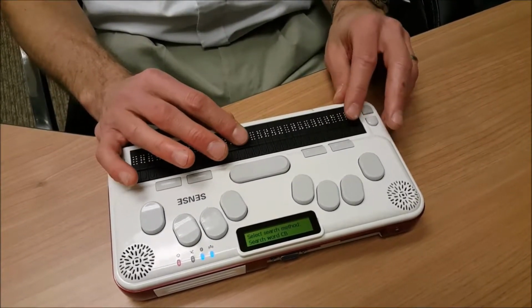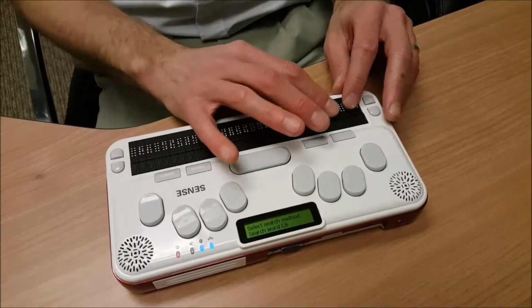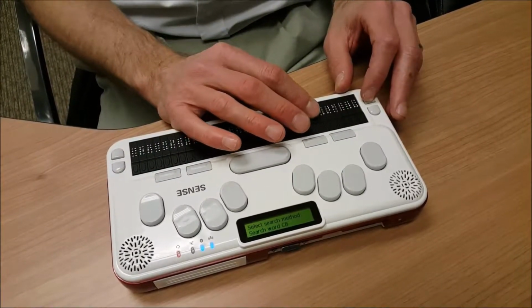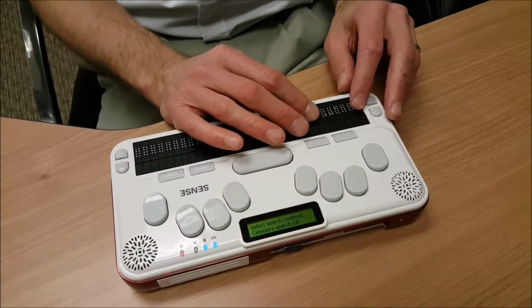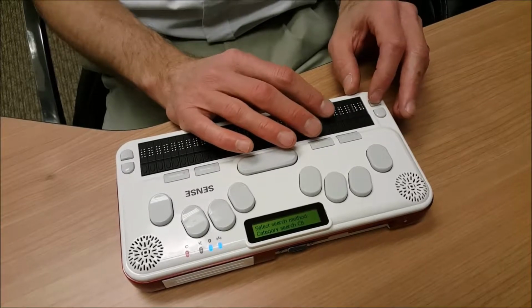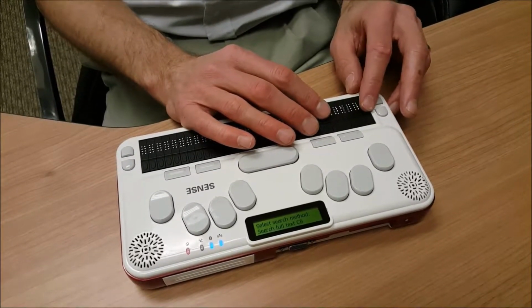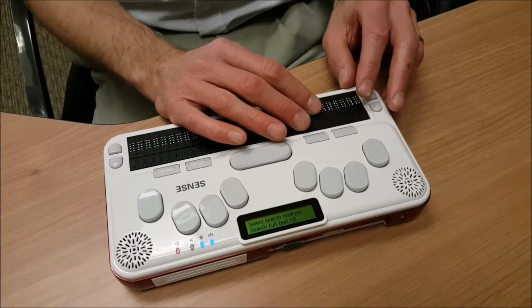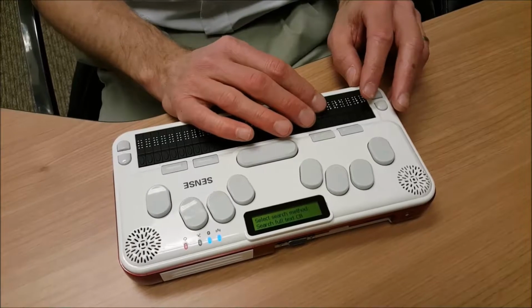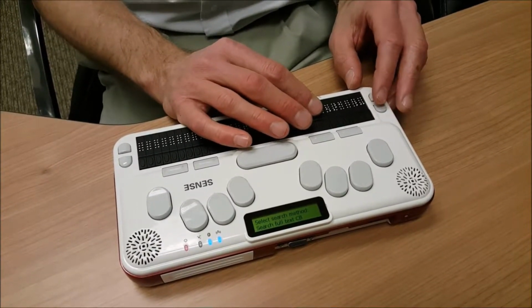Select search method. Search word. Combo box. And again, I am in a combo box. I can search by word. I can press my scroll down button. Category search. Combo box. I can search by Bookshare categories, or I have one more choice. Search full text. Combo box. The Search Full Text combo box will search the entire text of all books on Bookshare for a specific text string. This takes a very long time.